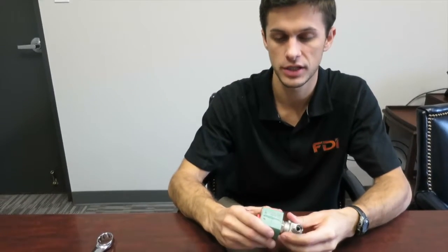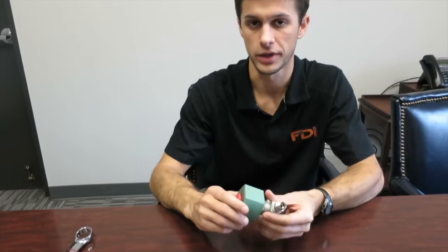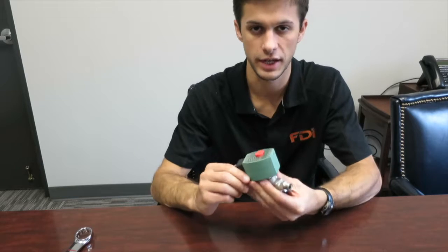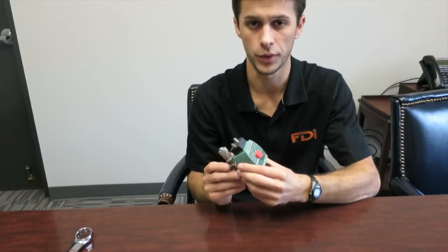Hello, my name is David Mihalik. I'm an engineer here at Fort Defiance Industries. We're talking about the P2131 sterilizer maintenance operations, and in this video, we're going to talk about the ASCO valves — how to rebuild them, how to take them apart, and what to look for when you're troubleshooting them.